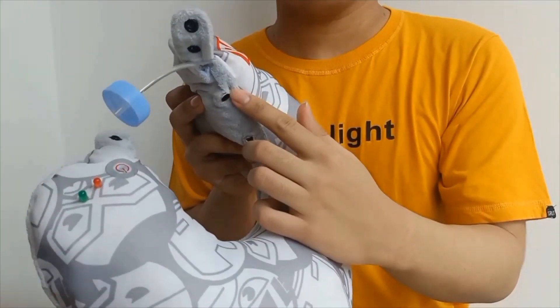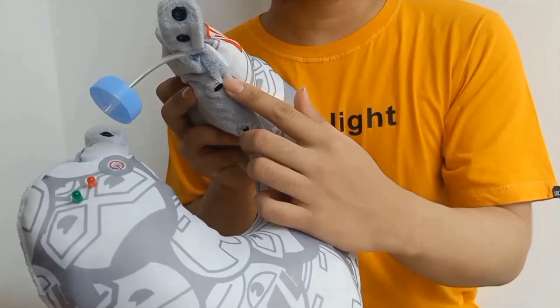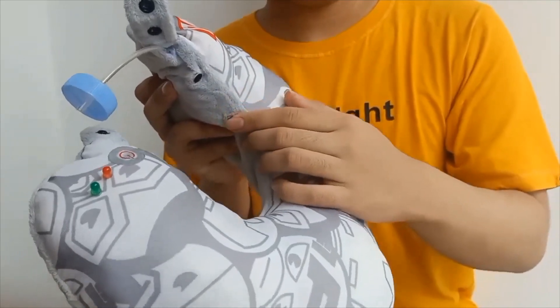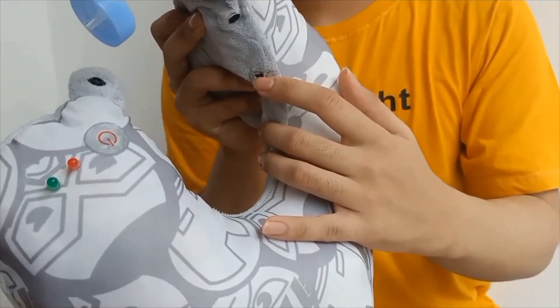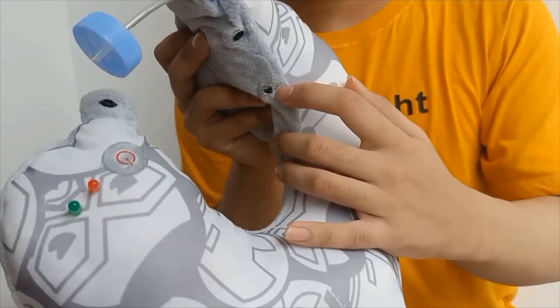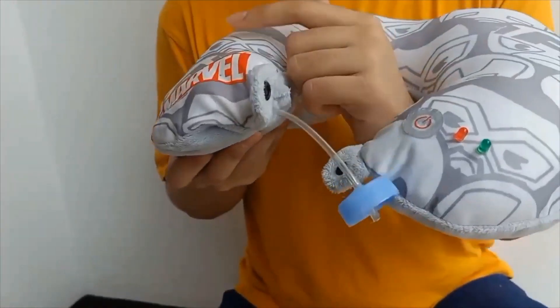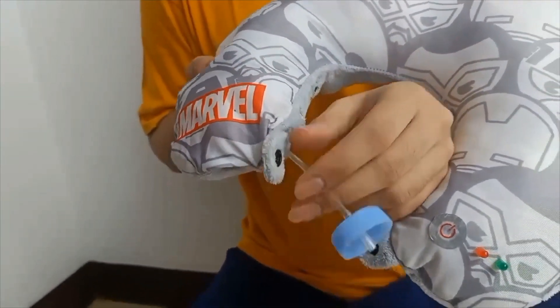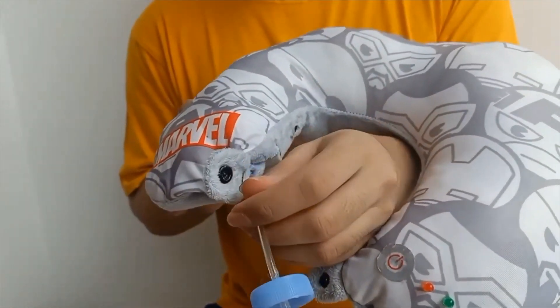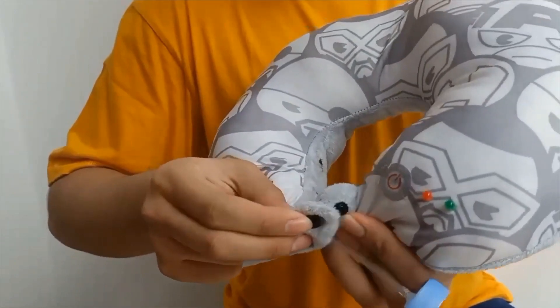The device has several sensors that attach to your neck. The first is an acoustic sensor that detects the sounds of your trachea. The second is an SpO2 sensor, which measures your oxygen level and heart rate to help detect sleep apnea. There is also a pressure sensor which detects pressure at your suprasternal notch — it has a tube and chamber that attaches to the front of your neck.